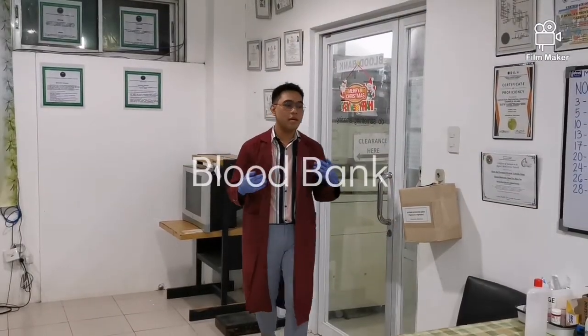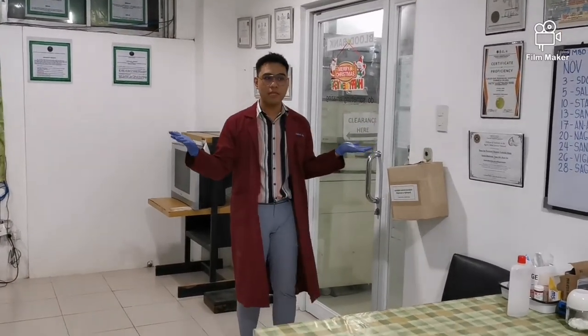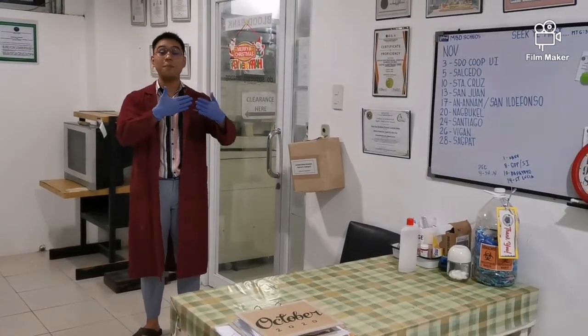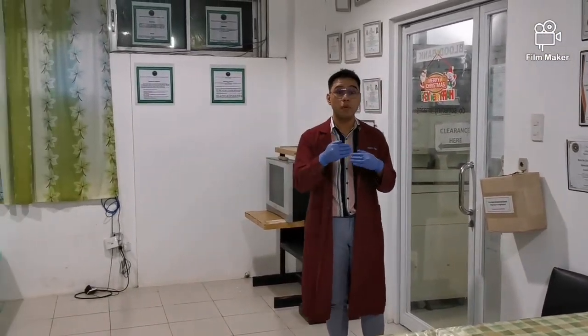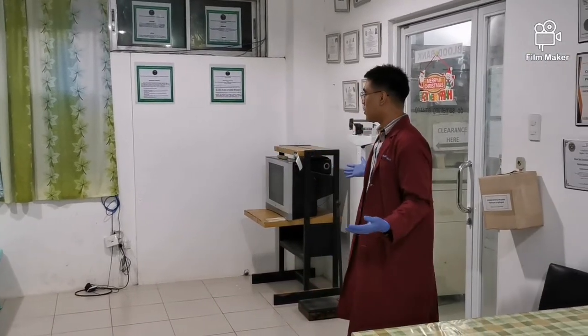And ayun, nandito naman tayo ngayon sa blood bank, okay? And as you can see, iba na yung ating environment kasi yung blood bank nila dito sa Gabriela, naka-separate. And usually ganun yung mga blood banks ng mga malalaking hospitals, okay? Lalo na yung mga government hospitals natin. Ayun, so ito yung reception area ng blood bank.